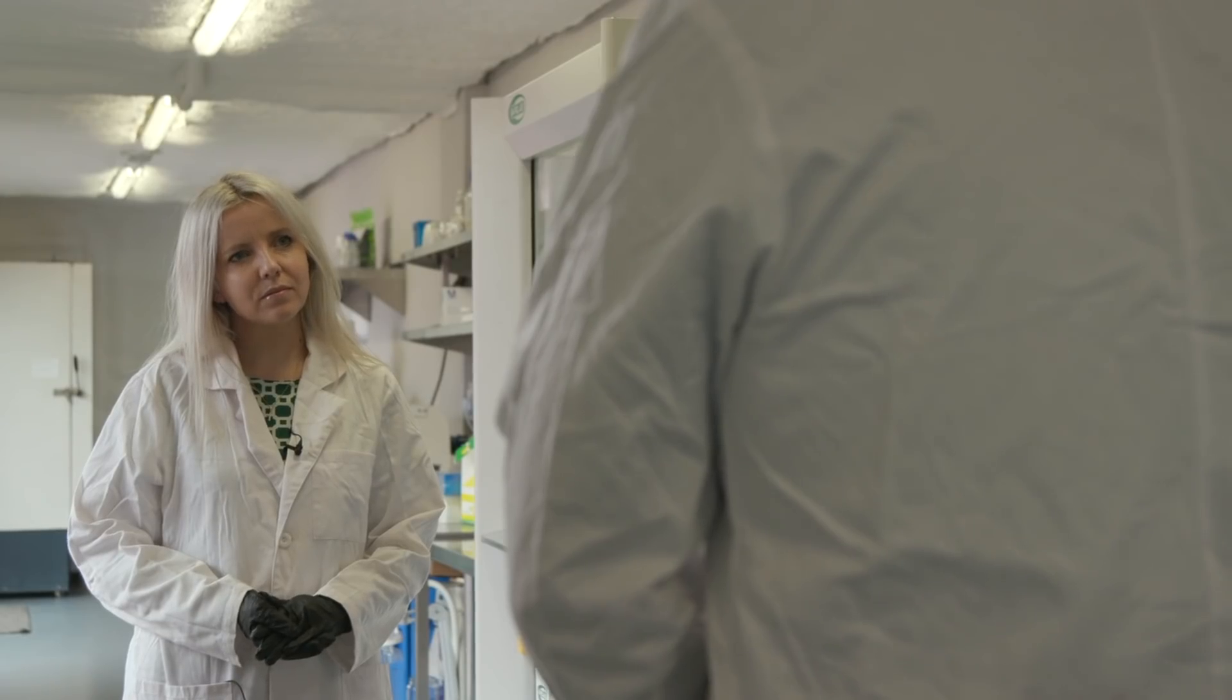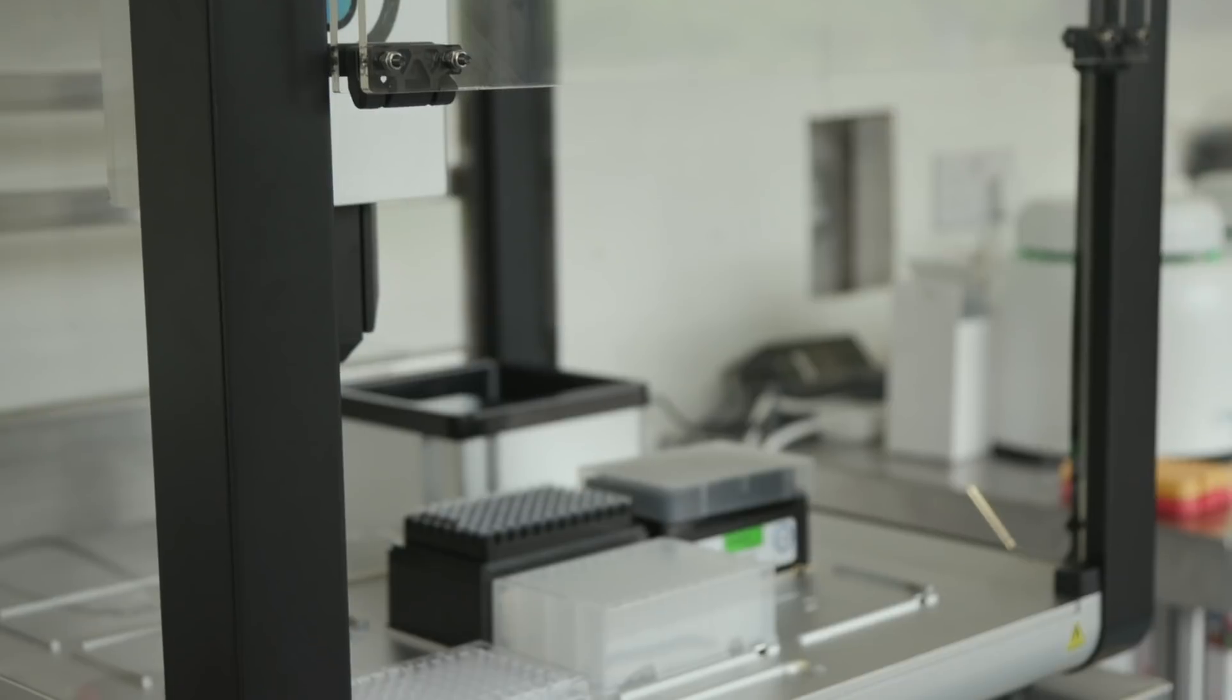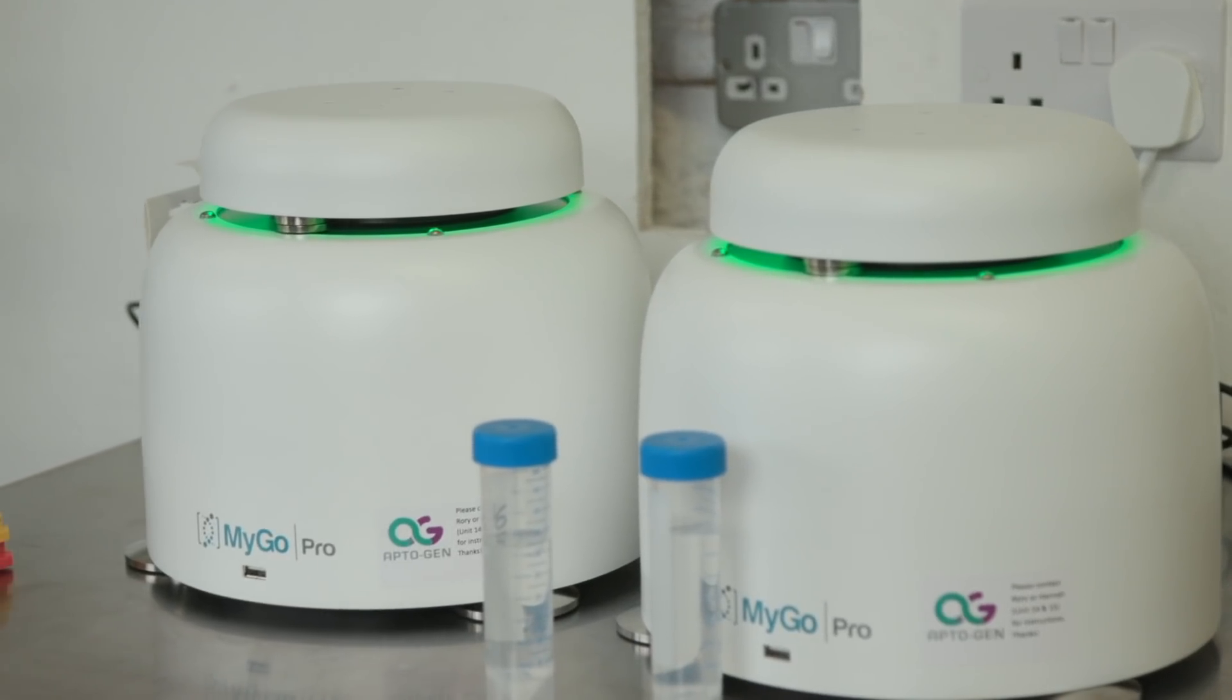Here in the UK, I think it's really about coming into that NHS pipeline, being able to augment someone's existing pathology department and being able to say, here's the molecular biology kit to high-throughput this, so that the same one person could do 96 tests when they're doing one anyway.